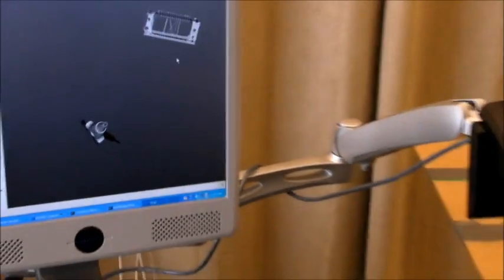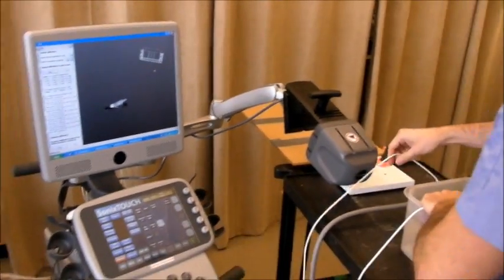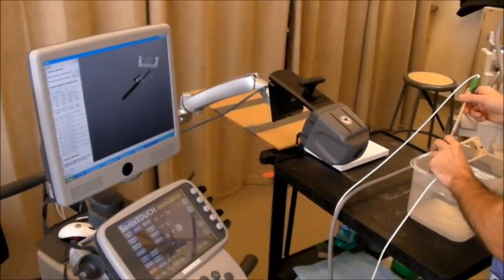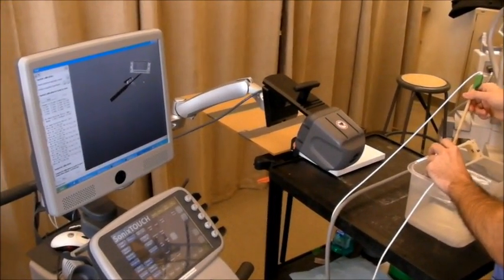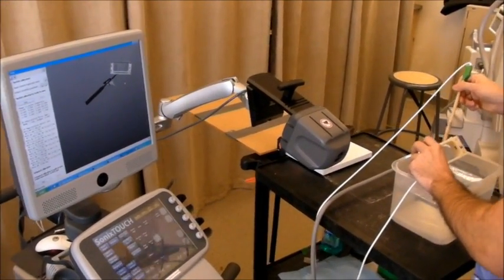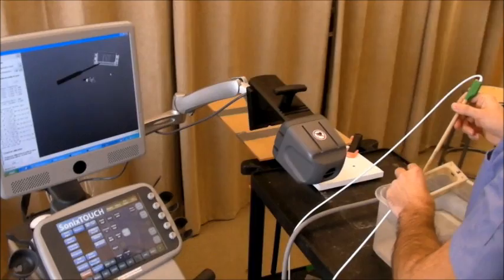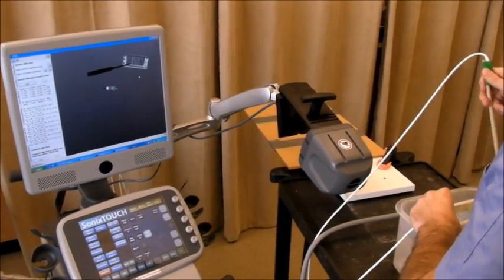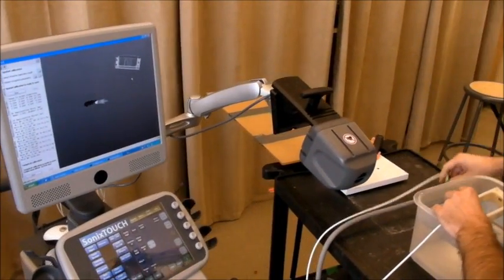I can use the stylus to validate the previous registrations. So, it's quite straightforward.